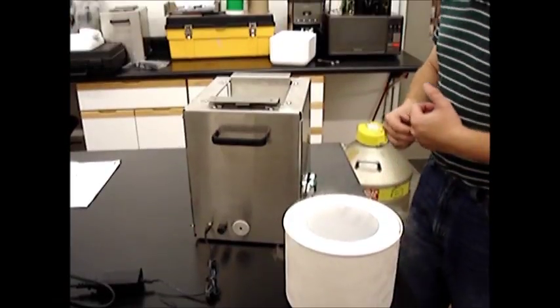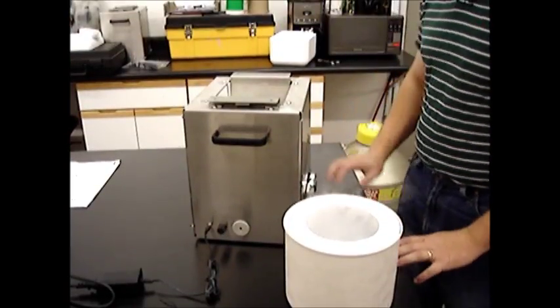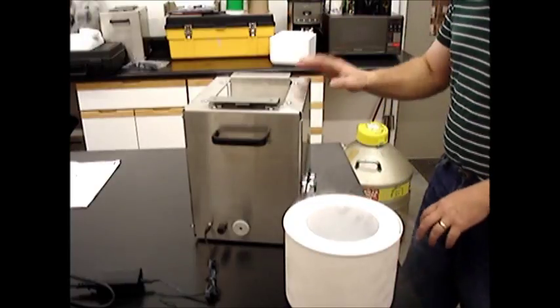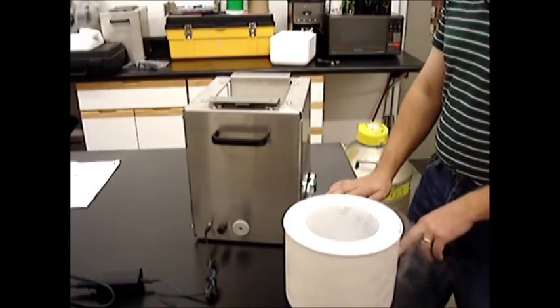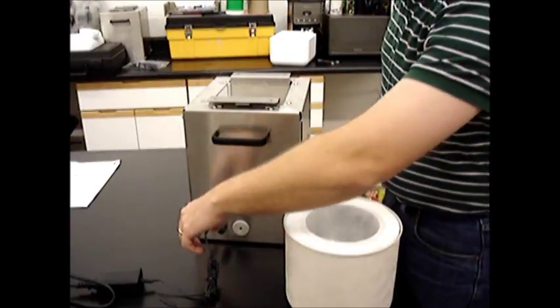Okay, we've went ahead and put our frozen semen in the tank and it's stored for long-term storage. Now we're going to go ahead and prepare the unit to be put away at the end of the day or at the end of the cycle.